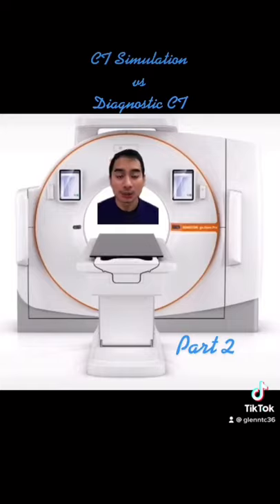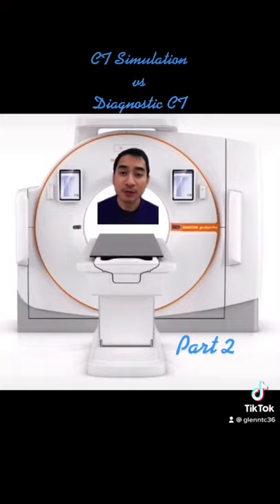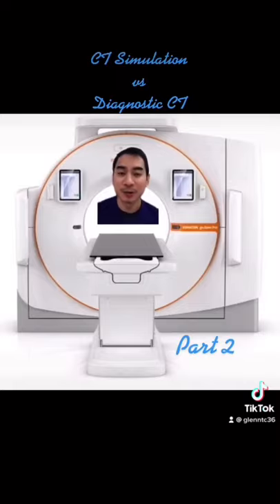Also, immobilization devices are used to position a patient during CT simulation.